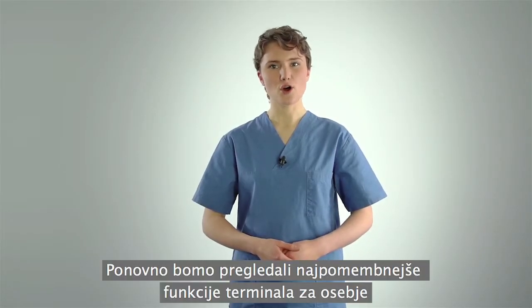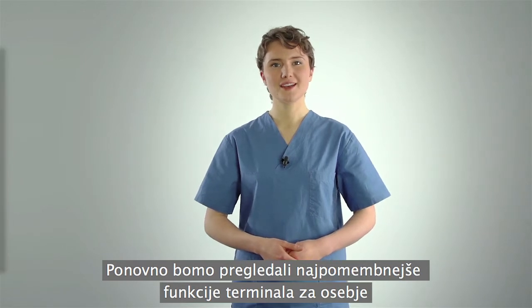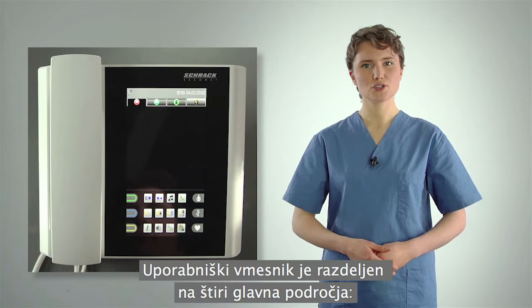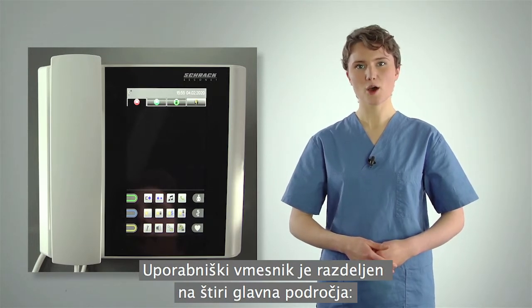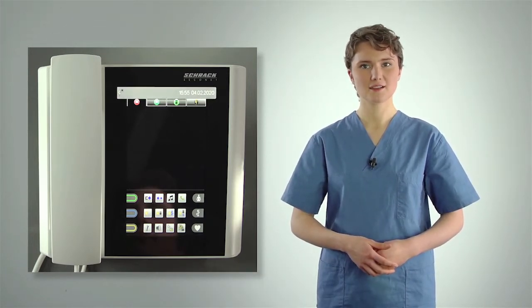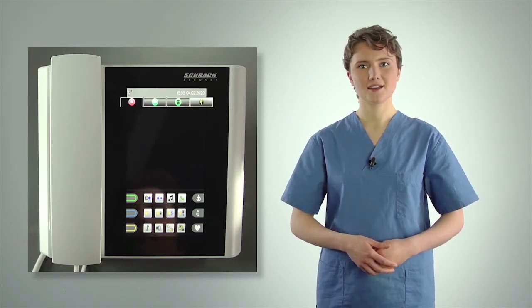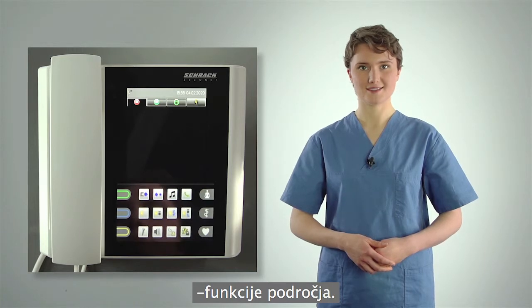To get a better overview, we'll now take a look at the most important functions of the staff terminal again. The user interface is divided into four main areas: the status bar, the tab bar with the list tabs, the list area, and the functions area.